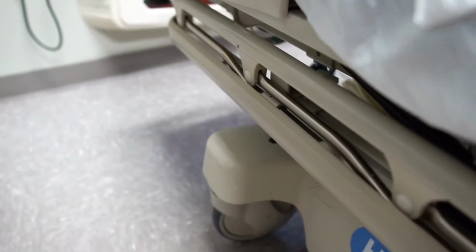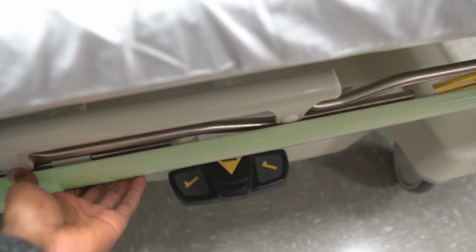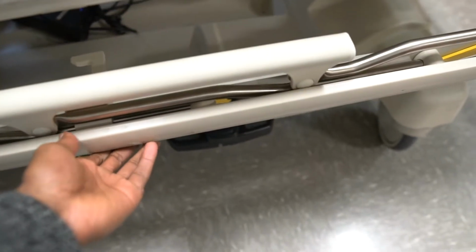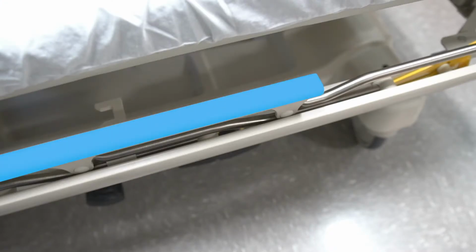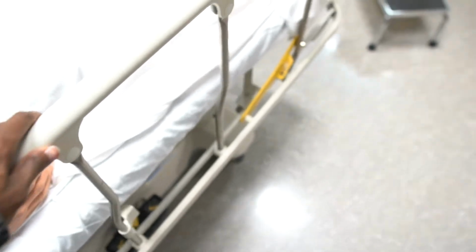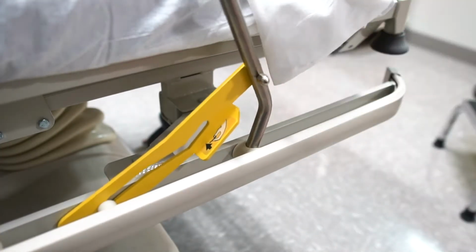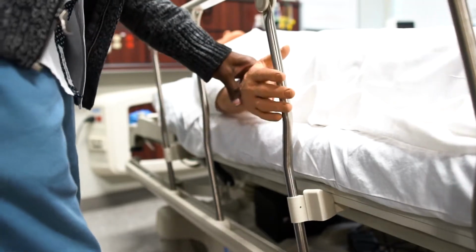This is the side rail of the stretcher. To access it, grab the bottom bar, pull it away from the stretcher, then grab and hold the top bar, then lift until it locks into place. To store it, lift on the yellow tab and reverse the raising process, but be careful not to pinch the mannequin.